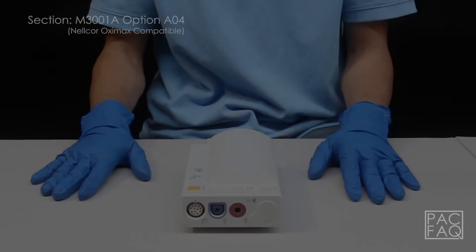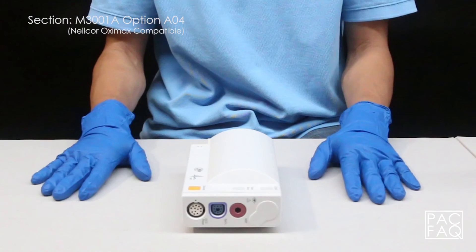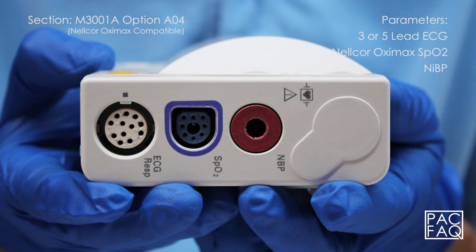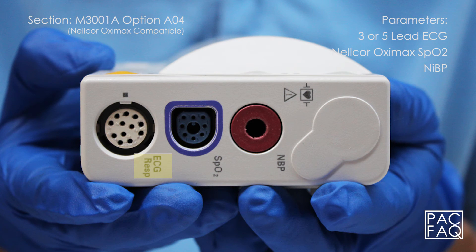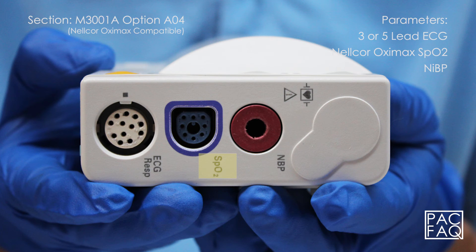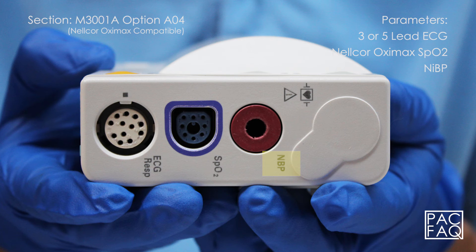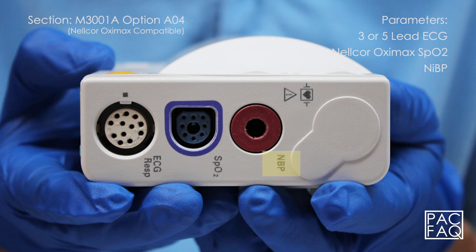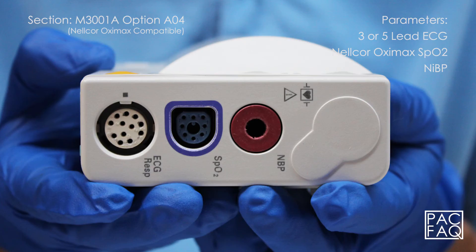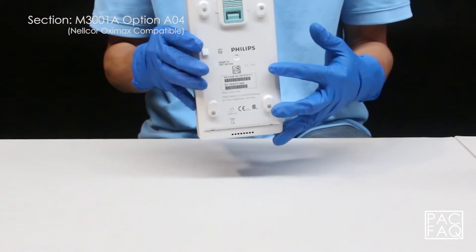Here we have option A04 standard. This unit comes with parameters 3 or 5 lead ECG, Nellcor OximaX SPO2, and non-invasive blood pressure. The product identification and serial numbers are located on the bottom of the unit.